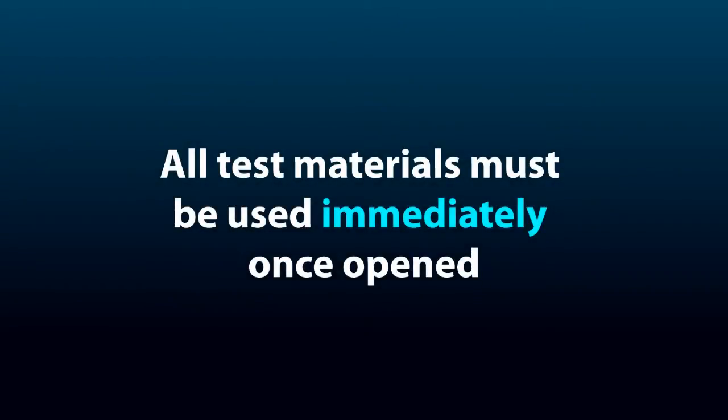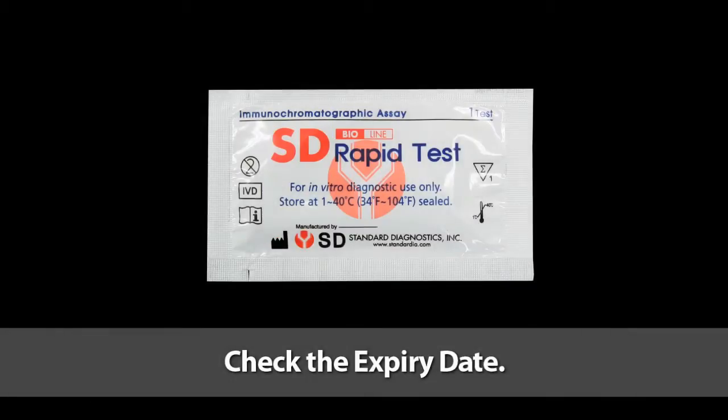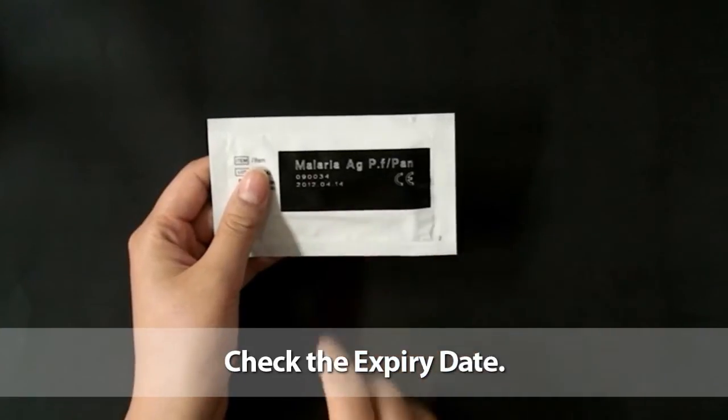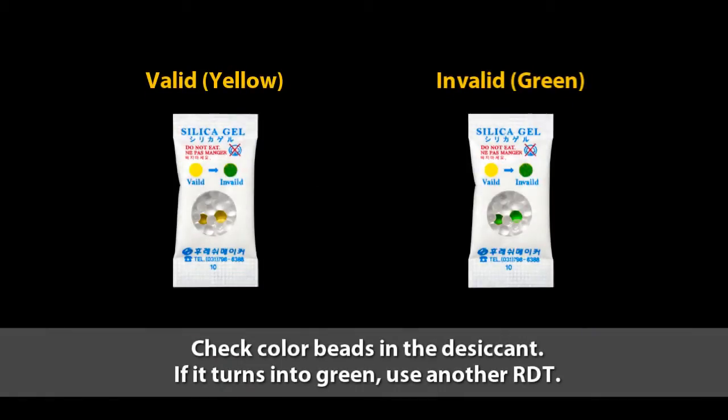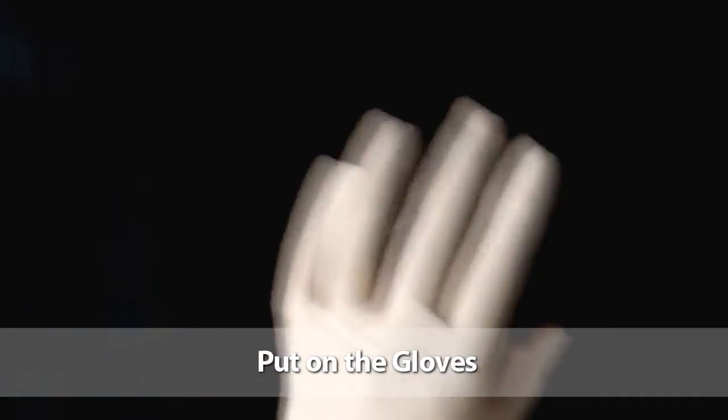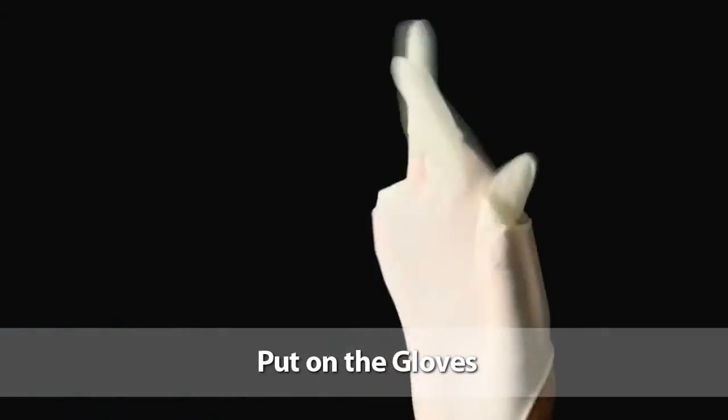Now remember, all test materials must be used immediately once opened. Let's begin the test. Check the expiry date on the back side of the test pouch. If the expiry date has passed, use another kit. Put on the gloves. Remember, use new gloves for each patient.